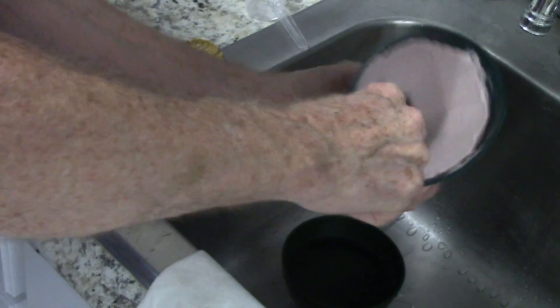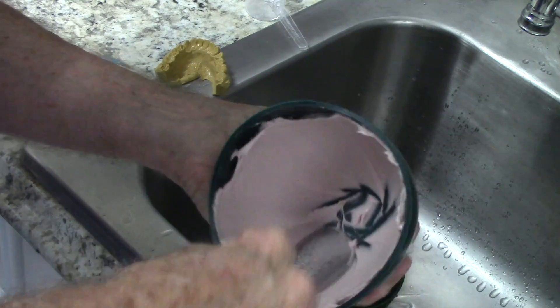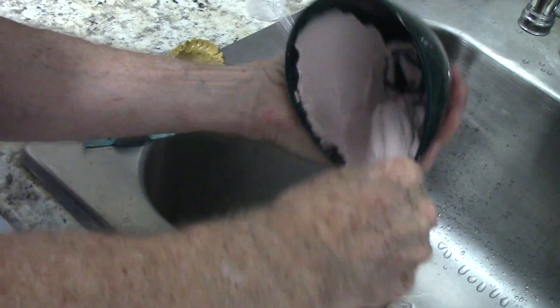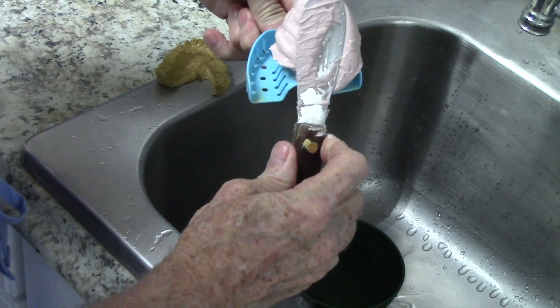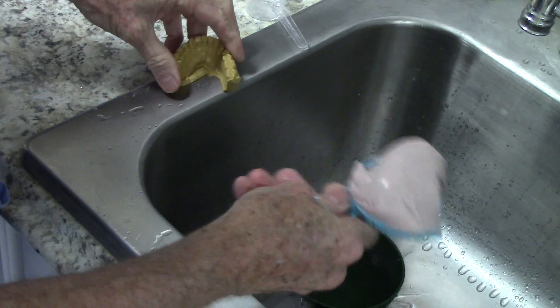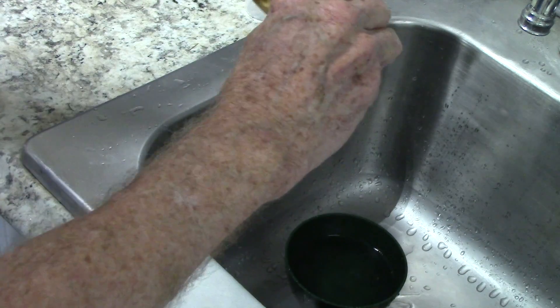Once I get it spatulated I like to turn it sideways and kind of smash out all the bubbles I can. Once I've got the bubbles smashed out, I'm going to turn the spatula this way and scoop it up. I'll put it on the back of the tray, give it a little shake, dip it in water one more time, and then put it on.